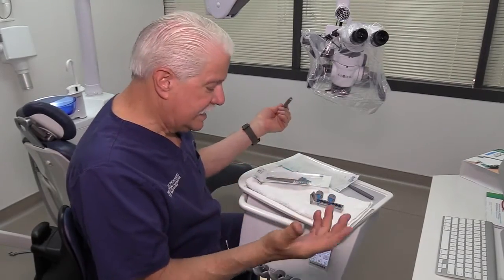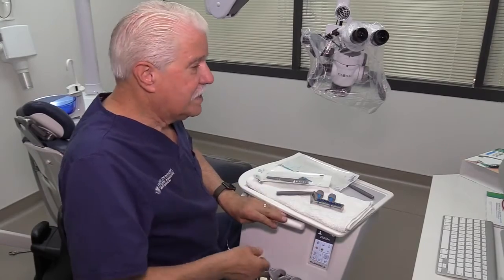It's neat, it's clean, it's complete. We're excited to use it. First thing tomorrow morning we're going to use it in a clinical case and we'll show you the video. It looks very slick.